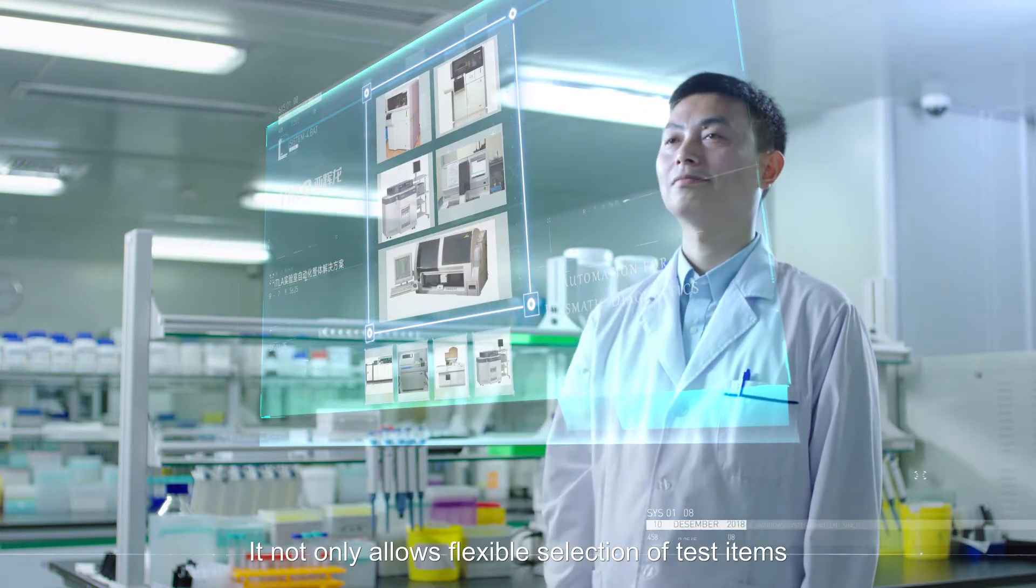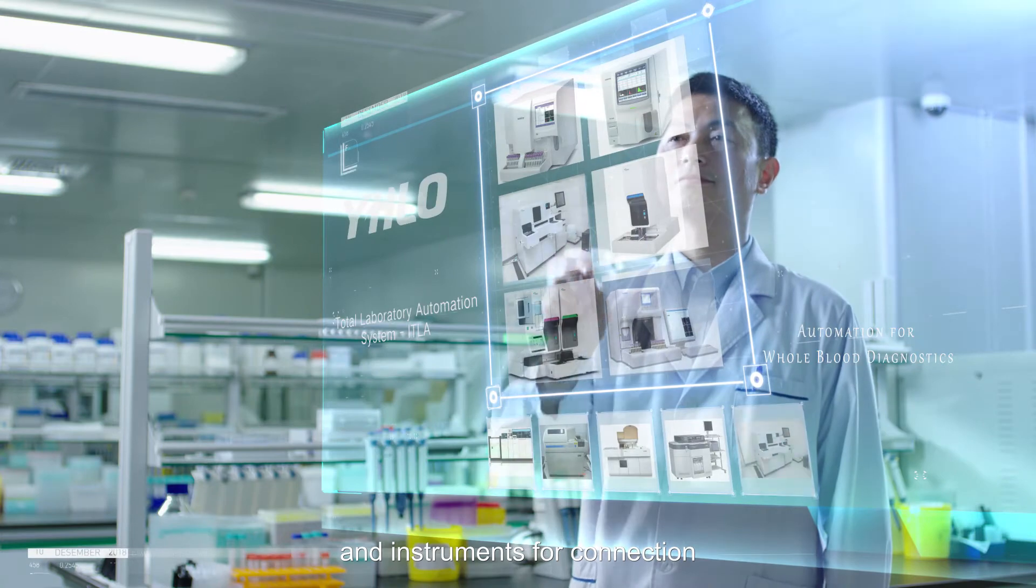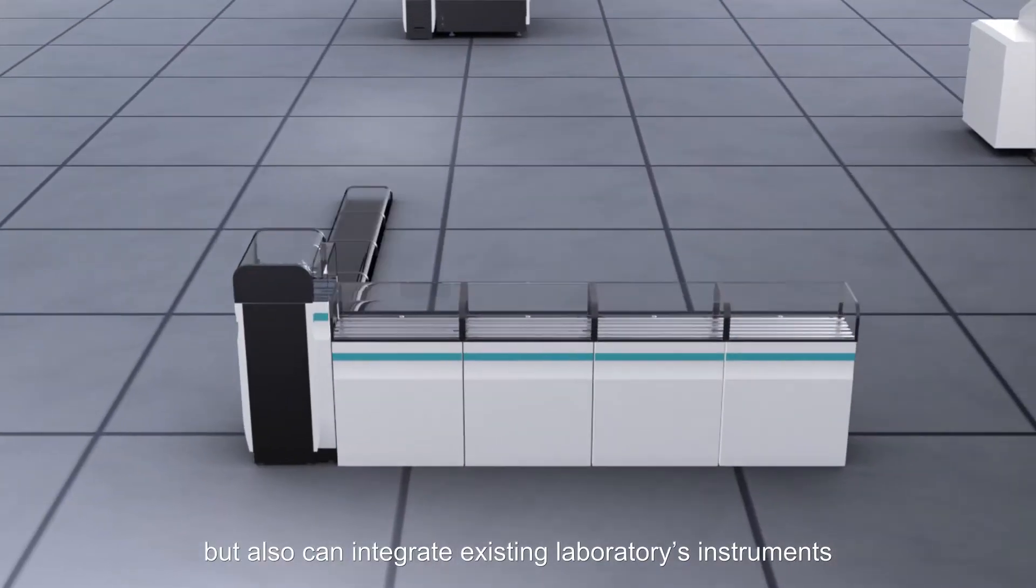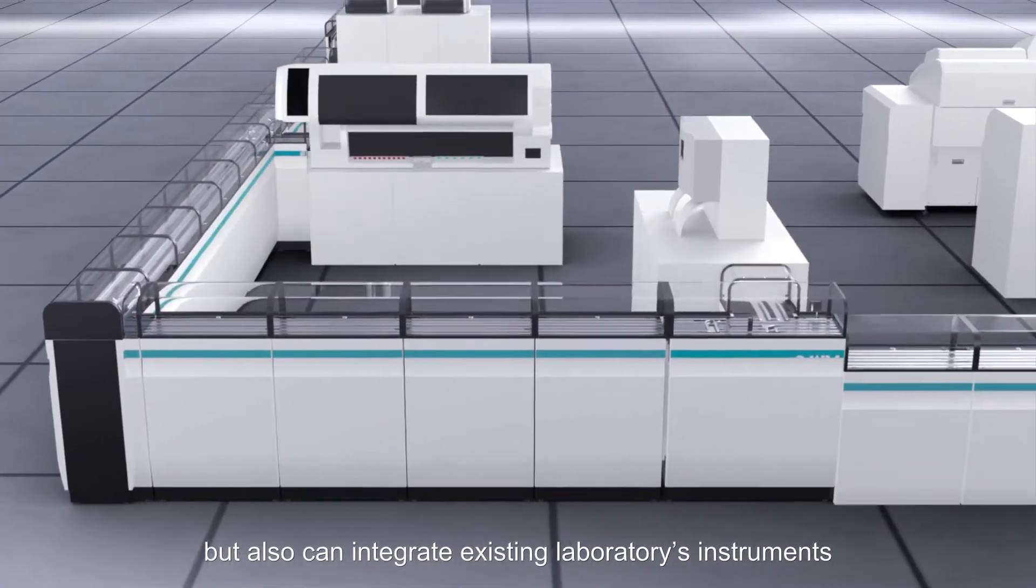It not only allows flexible selection of test items and instruments for connection, but also can integrate existing laboratory instruments.